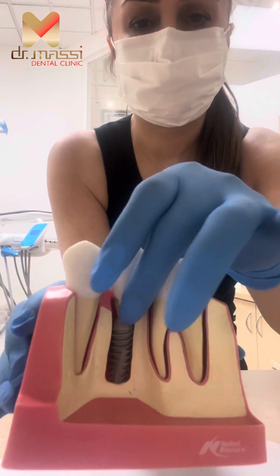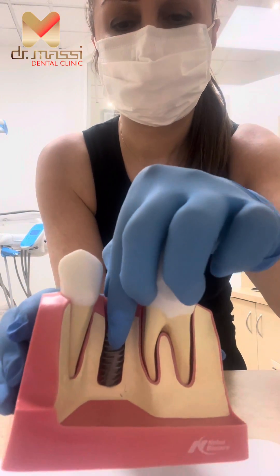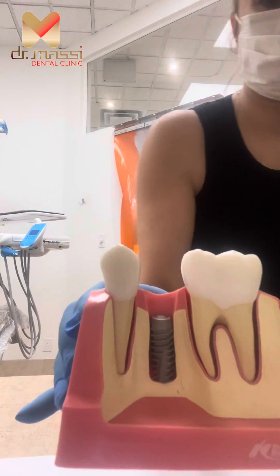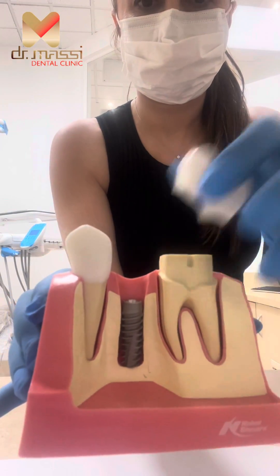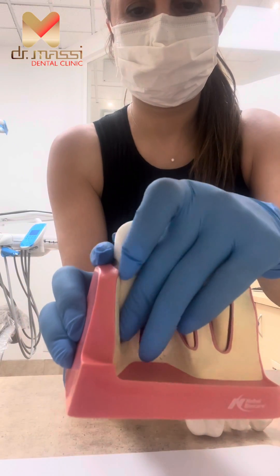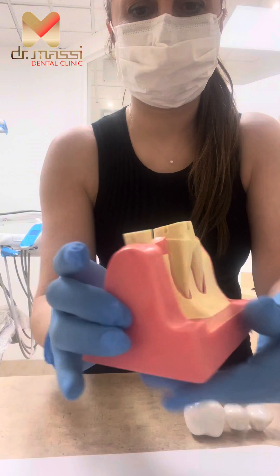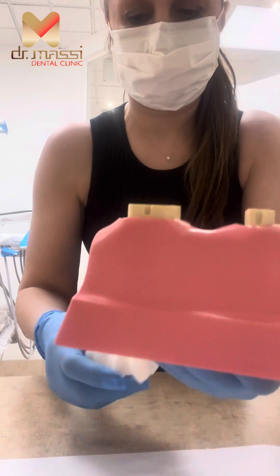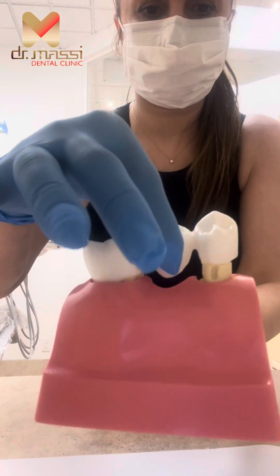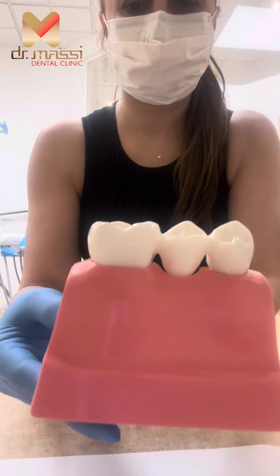So we are doing the middle implant, and we are not touching the two adjacent teeth. It's clean and nice — there are a few components of the dental implant. If you remove the two crowns on the two teeth on the side, for example, if you have a missing tooth in the middle and you want to do the dental bridge, you have to prep the teeth down to a smaller size.